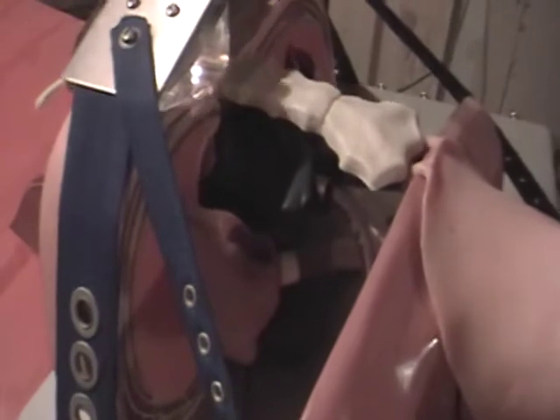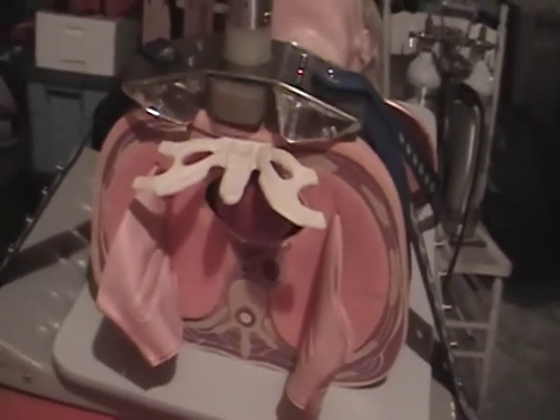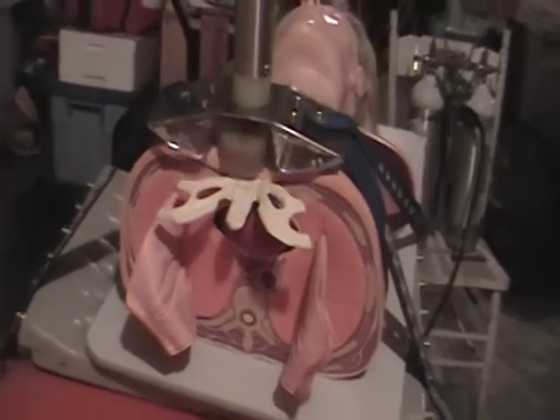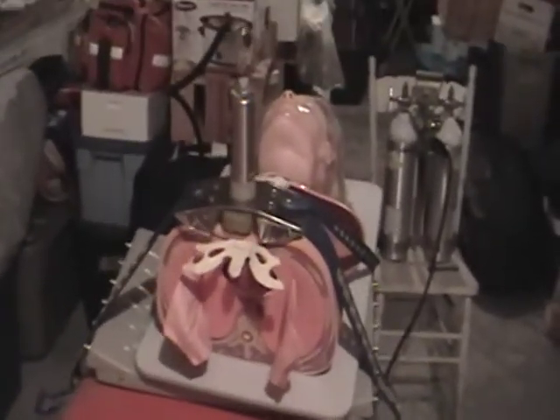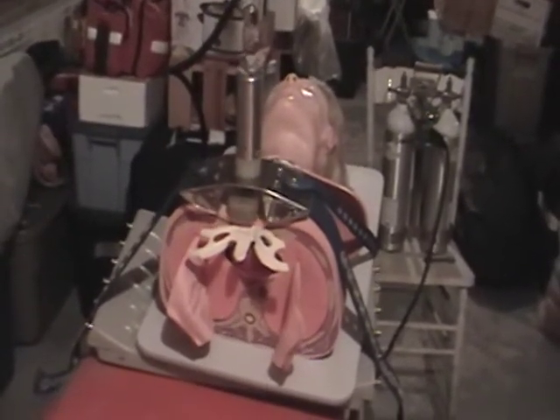You can see we've got the heart inside and the lungs here on the Resusci Annie. This is something neat to put in my '69 or the '67 once we hit it on the road.